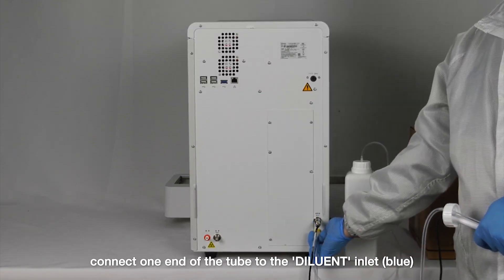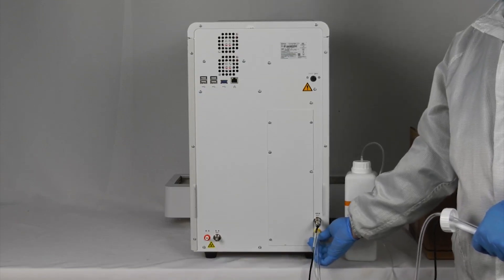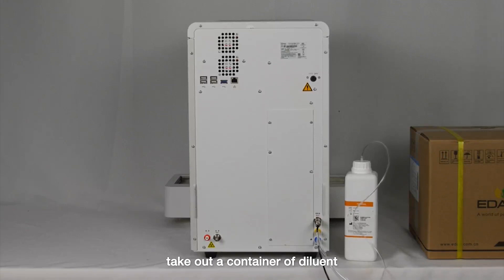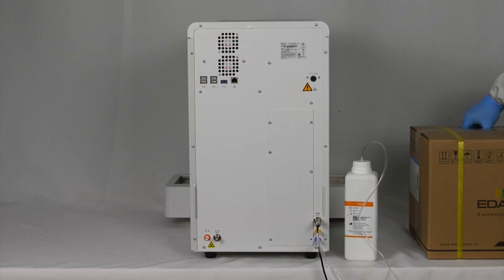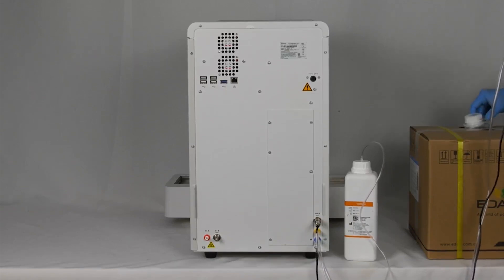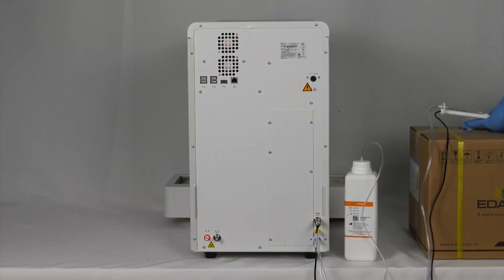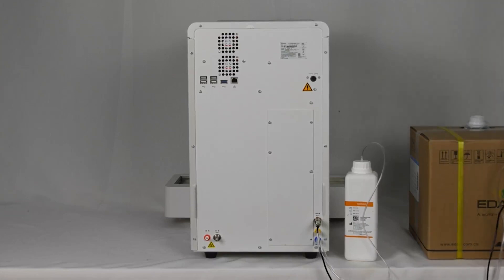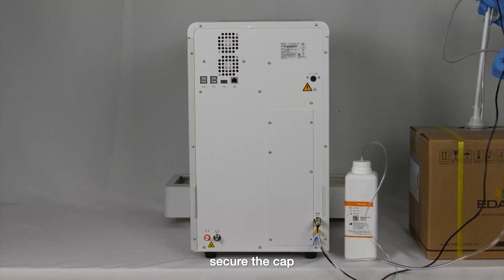Take out the tubing connector of diluent from the accessory bag. Connect one end of the tube to the diluent inlet. Take out a container of diluent and open the cap of the diluent container. Insert the opposite end of the tube into the diluent and secure the cap.